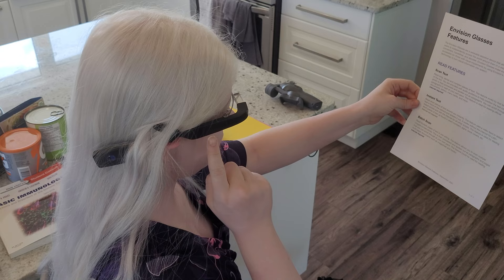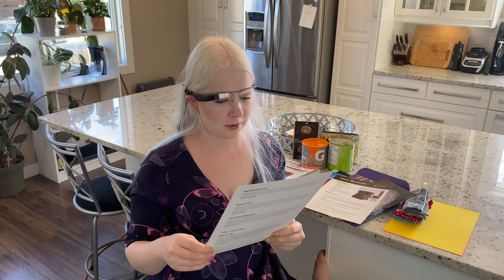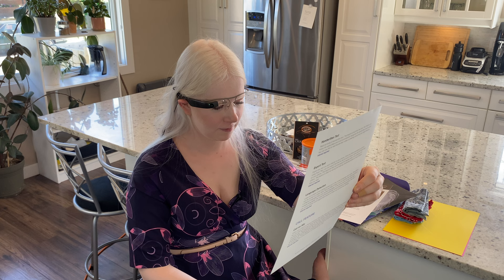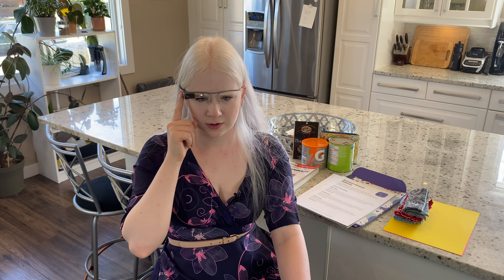We're going to try this — one of its demo documents. The device seems to have frozen: 'Hello? Did you die? Hello? Envision? Home.' Okay, we're back up and running. Let's try instant text again with one of the test documents. It reads: 'Envision glasses. Features. The Envision glasses are a wearable assistive device that allows users to independently access the world around them in a way that is convenient, hands-free, and discreet. Envision glasses make everyday life more accessible for those with visual impairments by using Envision's award-winning AI technology to turn visual information into speech.' It's doing very well with this.